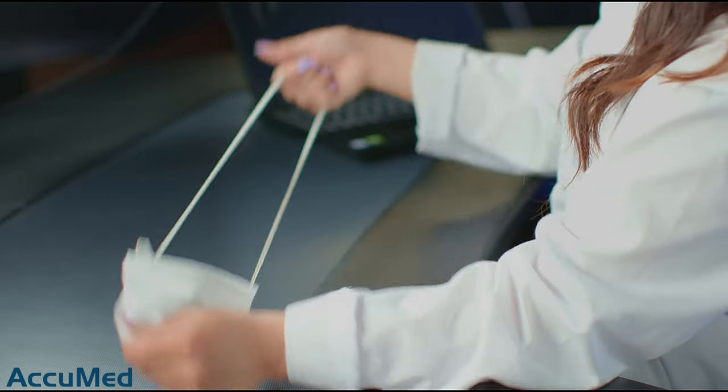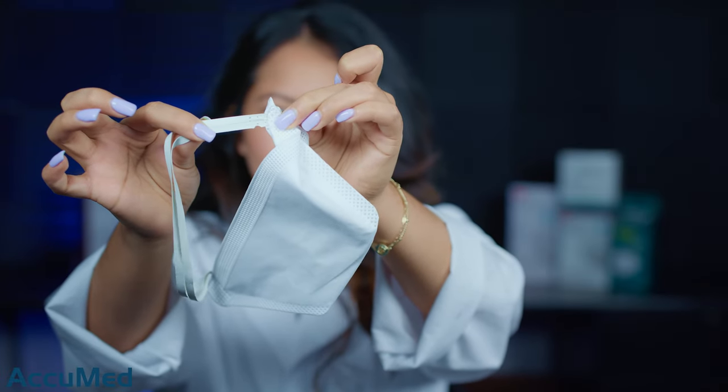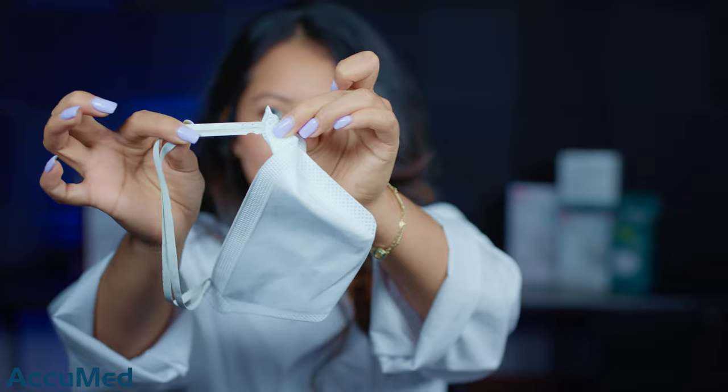I'm not really a big fan of these straps, just because I know that if they do snap, it is gonna hurt. They're not fully rubber, but just not quite a fan. I didn't pull that hard on them, and as you guys can see, they're already starting to snap. So I'm gonna go ahead and take out another one before they snap on me when I put them on.